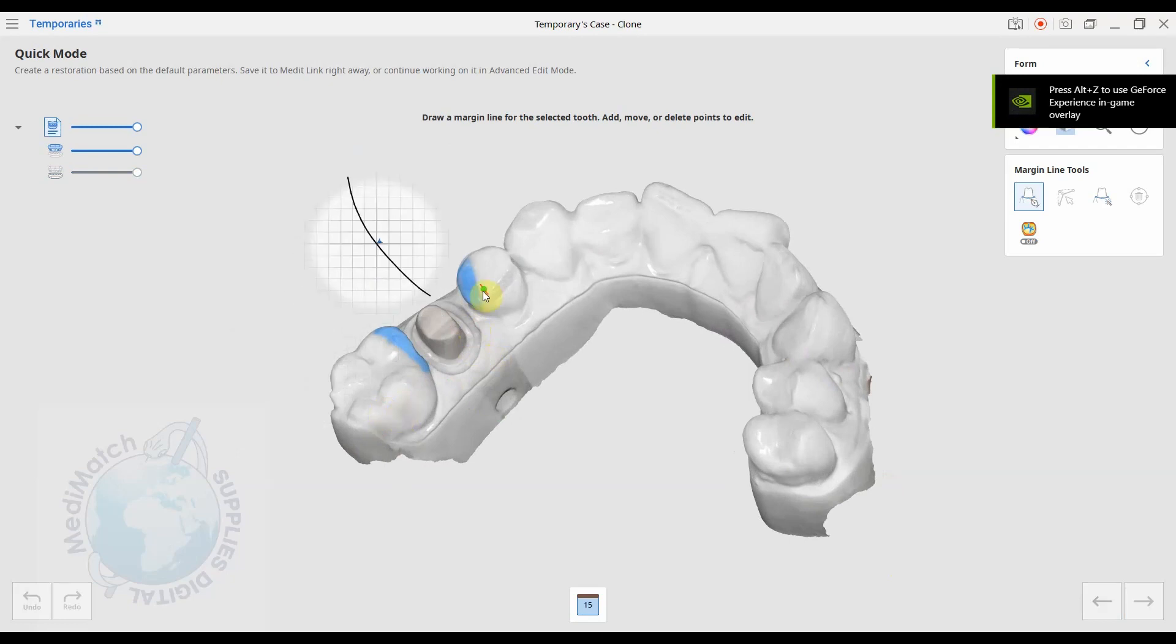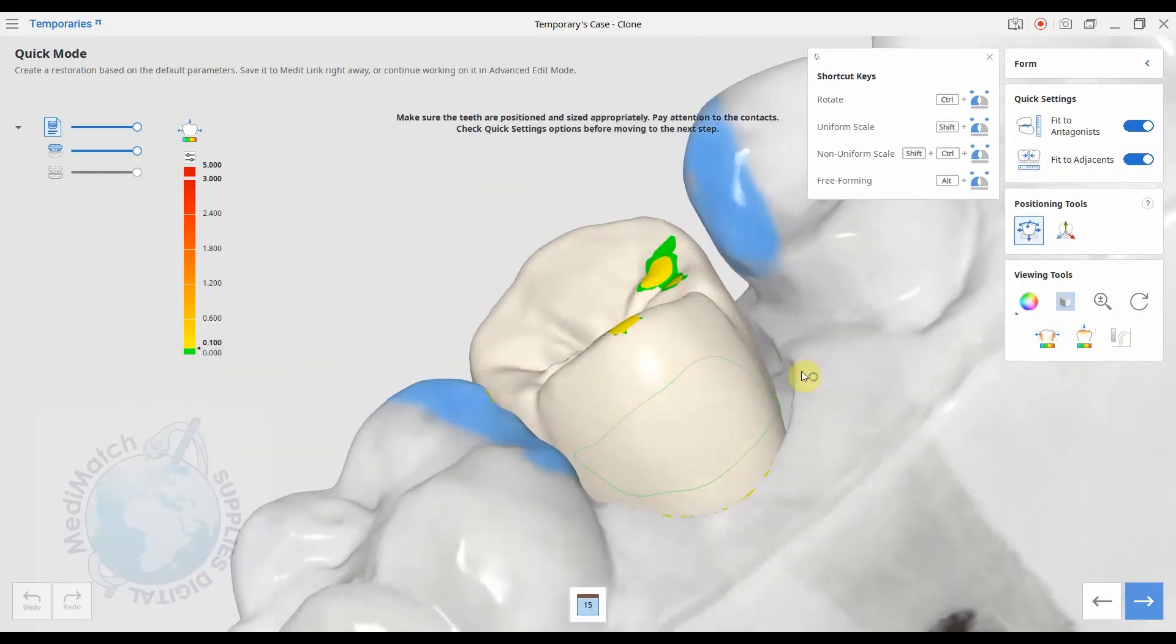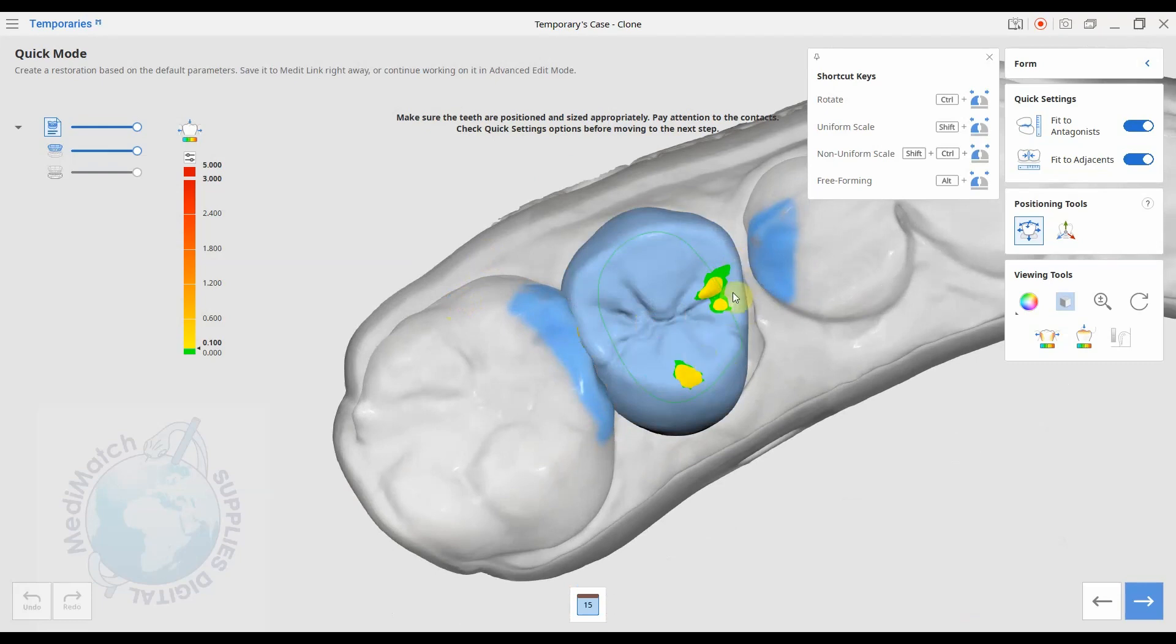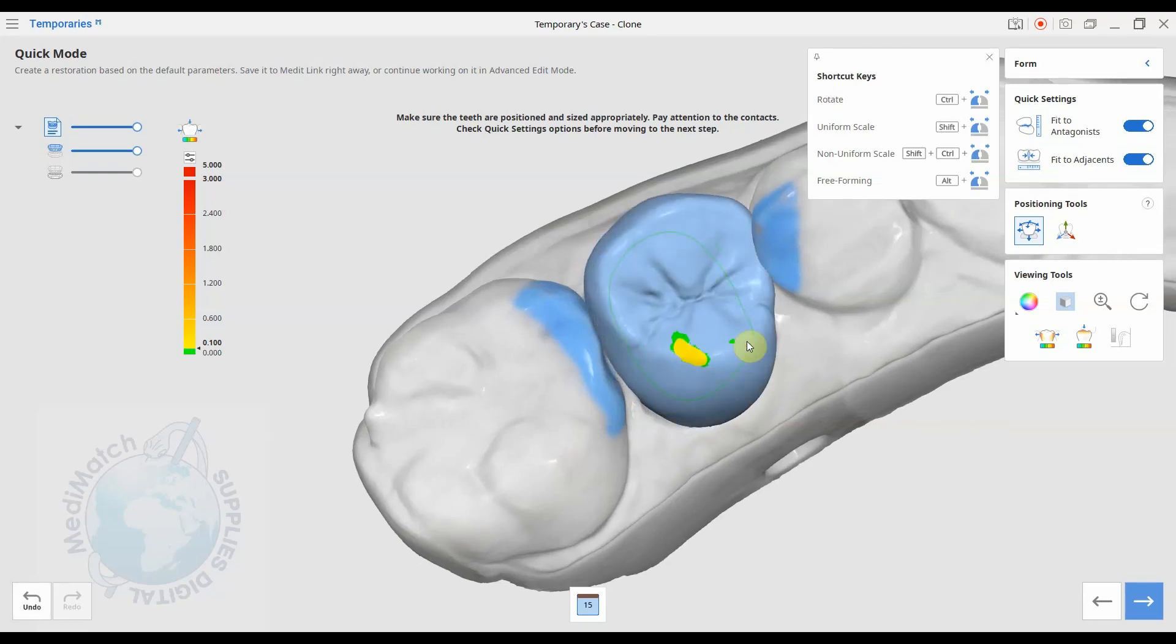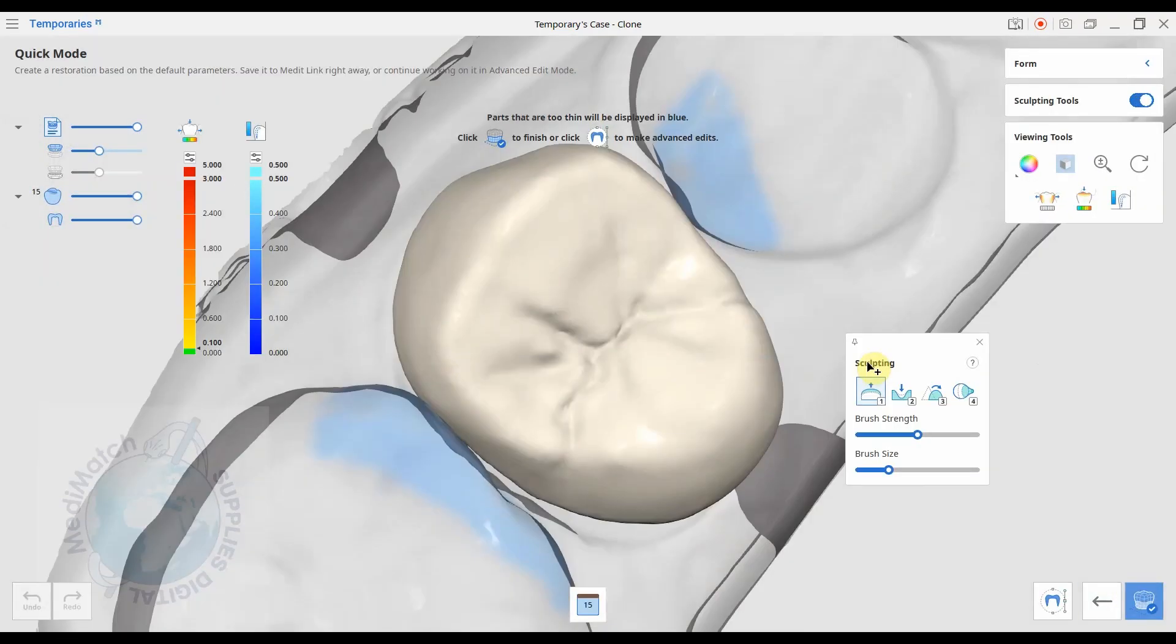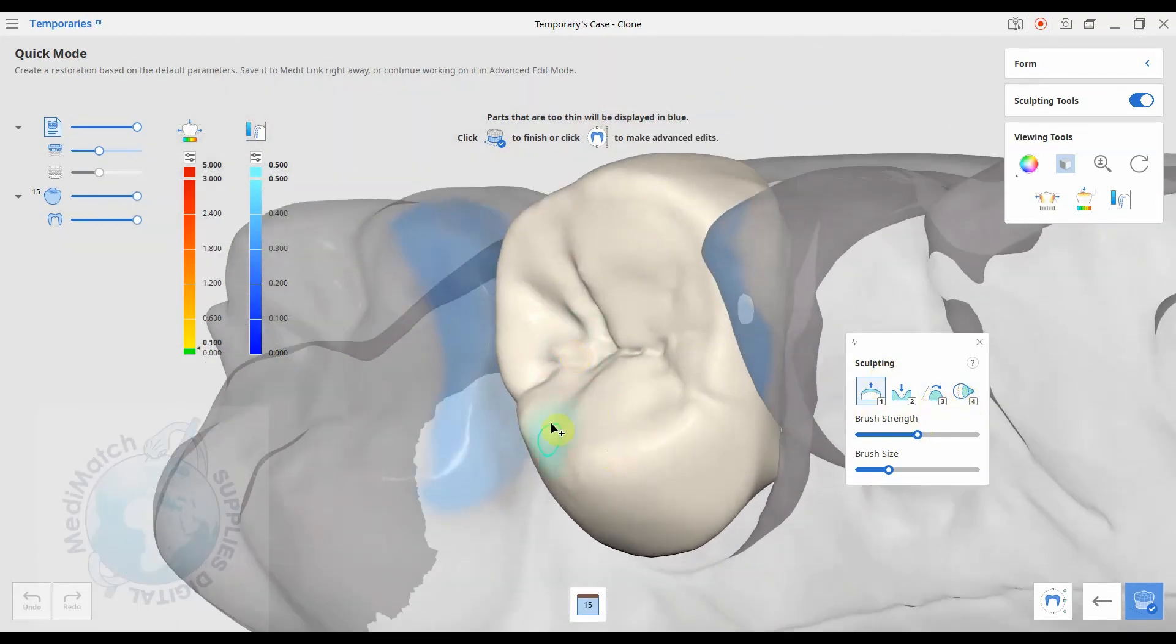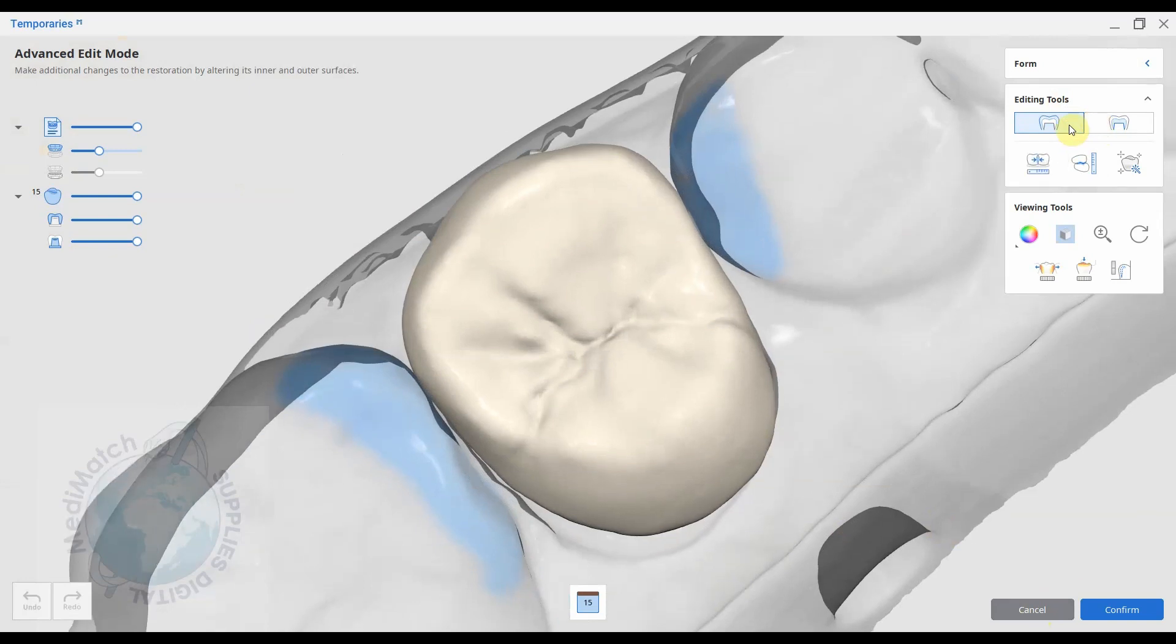It's going to ask us to define the margin. I'll press next and you can see it's brought in a library file, a library crown. At this stage we can make any adjustments. It's showing us contact points here and with the occlusion. So if we move this a little bit perhaps and rotate slightly, we can do whatever we want to get it into the right position. And then when we're happy, we press next and it will crop all of that data for us and produce a crown based on that library file. Here, as before in the previous version, you can add and remove material and smooth bits off. It has automatically adapted to the occlusion and the adjacent teeth.